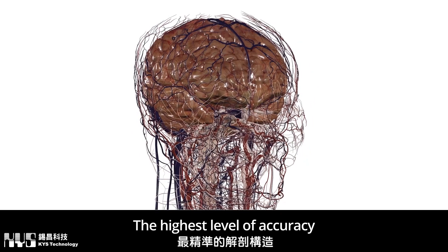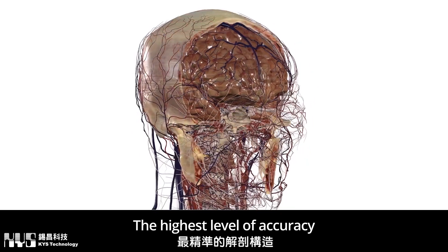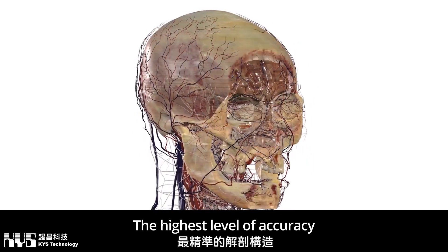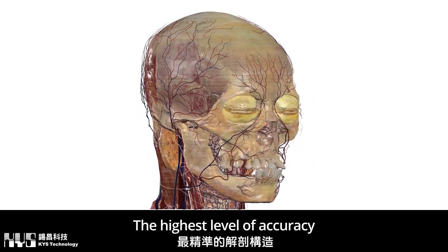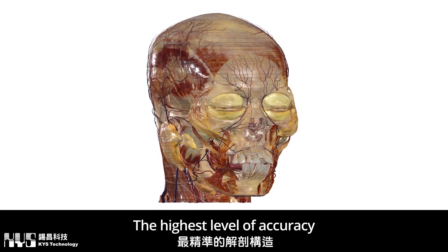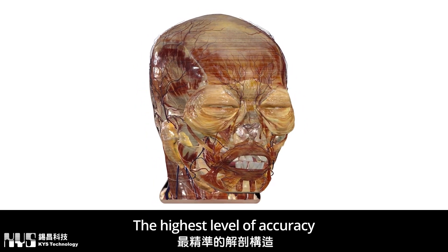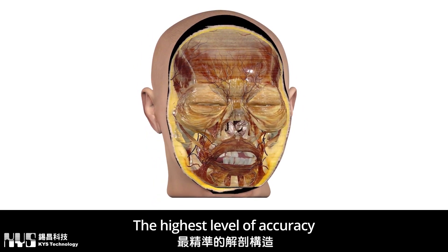Learners can now visualize real anatomical details with unparalleled resolution across the Anatomage bodies — 3D cadavers derived from actual human bodies.